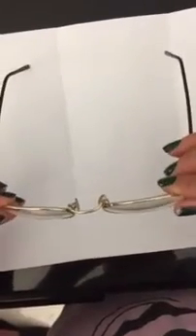Negative face form should be corrected. Negative face form looks like this. Our face is not like that. We therefore should always have a little bit of face form. To correct any plastic frame, you must heat it first.